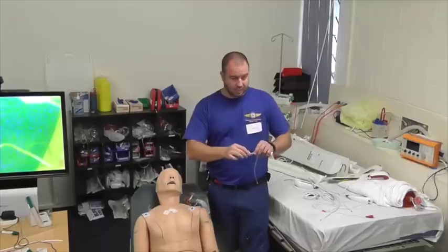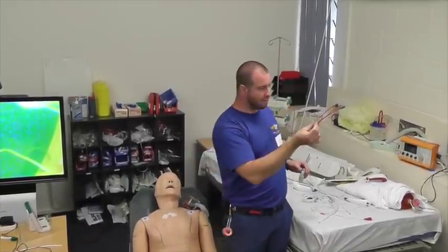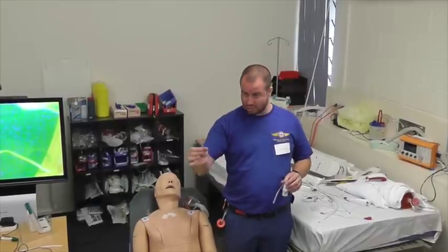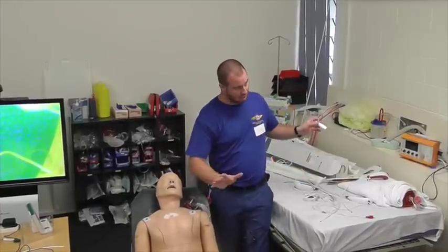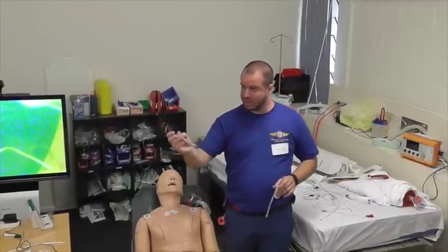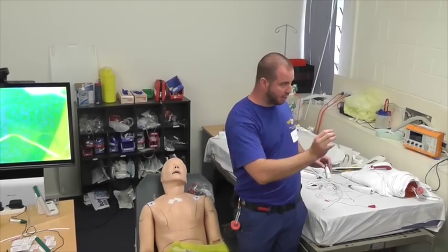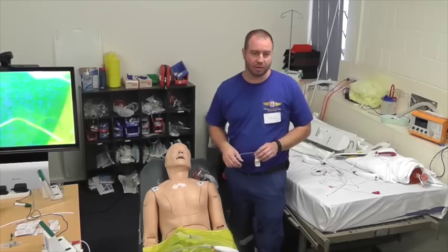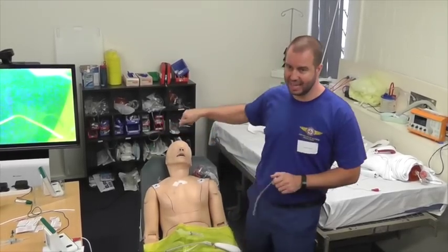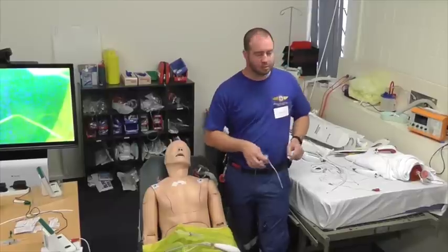What I would also tend to do is, if they have some lignocaine gel, I put it on the outside of my nasopharyngeal, which is my portal for going through the nose. And I'll put that in the nose and leave it there. Before I put that in, I will split that nasopharyngeal in a certain fashion. I'll tell you why I split that in a certain fashion in a minute. So I put the local anaesthetic gel on that and I put it in the nose. The reason why that's not in the kit is because it needs to be stored in the refrigerator and it's just not suitable for our shelf life.